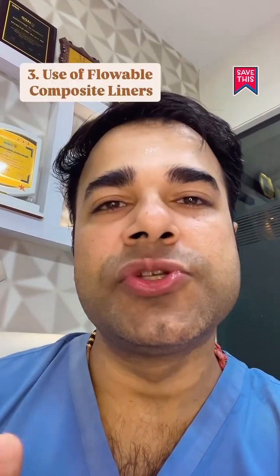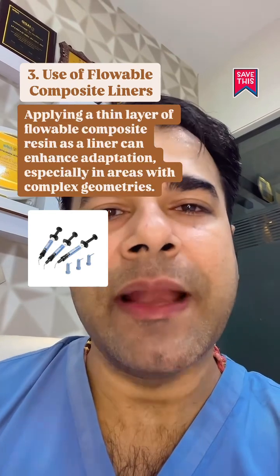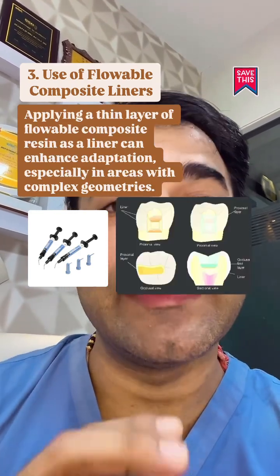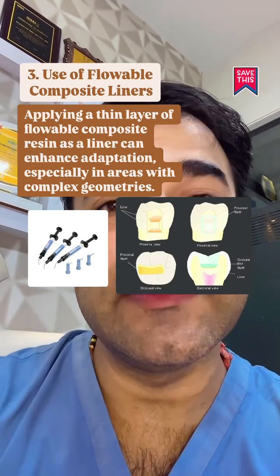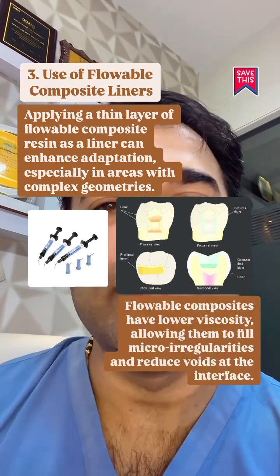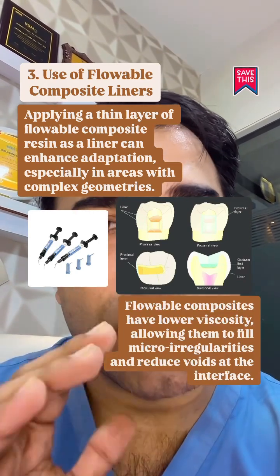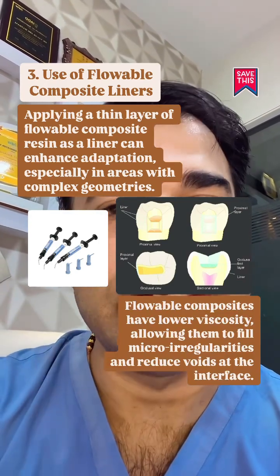Use of flowable composite liners: applying a thin layer of flowable composite resin as a liner can enhance adaptation, especially in areas with complex geometries. Flowable composites have lower viscosity, allowing them to fill micro irregularities and reduce voids at the interface.